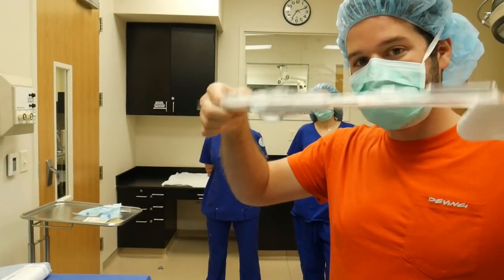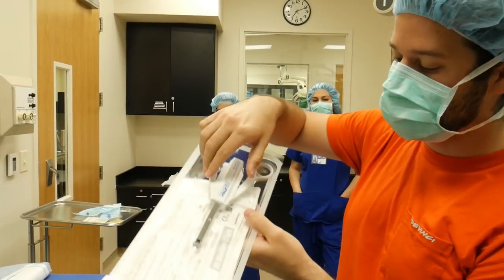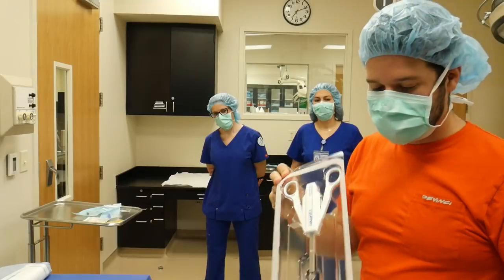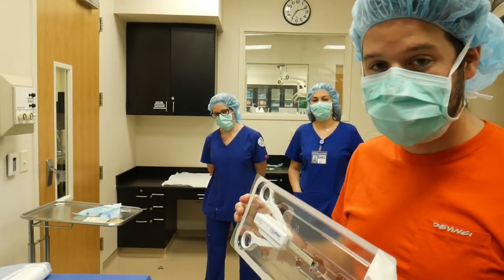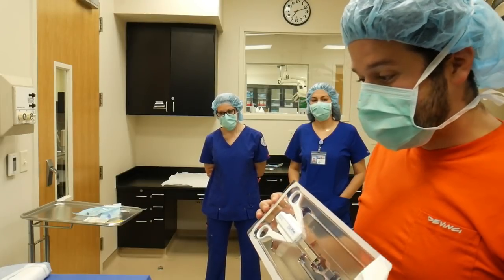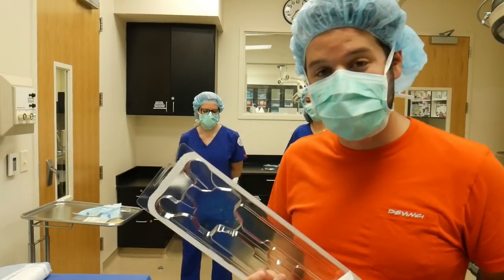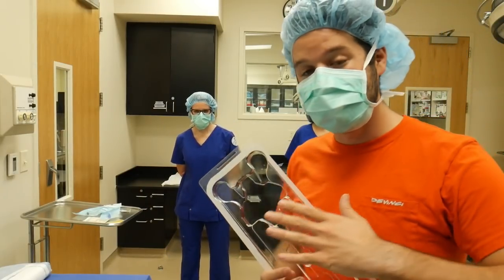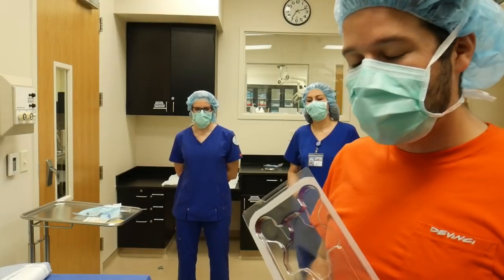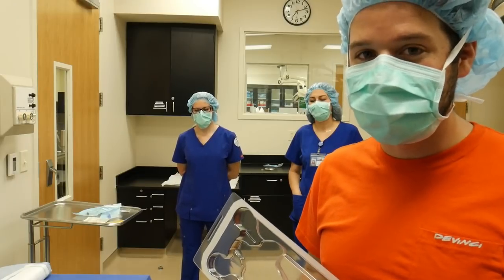It's a plastic device and as you can see, it's not just going to fall out of here. The way this device is manufactured is to really keep it in place by the plastic, so there's really no other way but to get a little bit closer to the field. I know it's against everything that your school and book says, but it's literally the only way. Another way of getting around this: if you only have one or two items that are difficult to open like this, you can just keep it off the field, scrub in, and have your nurse open it to you so you can grab it right out of the package. You don't always have that luxury though, so I'm telling you right now — it's not always 100% what the book says.